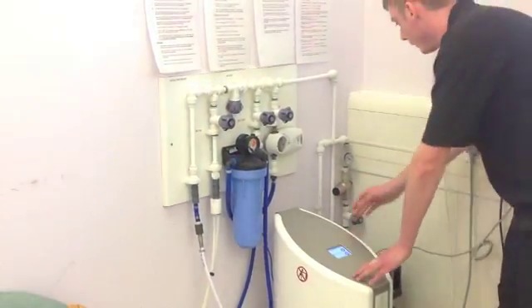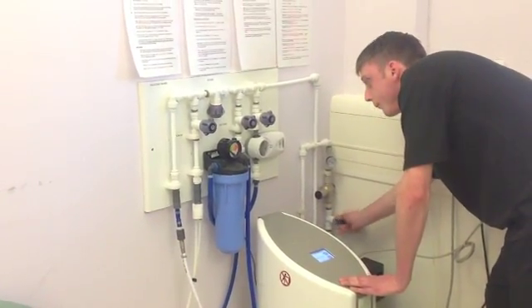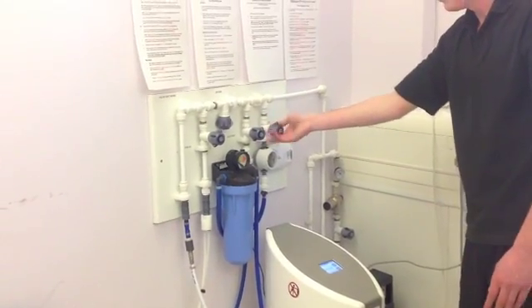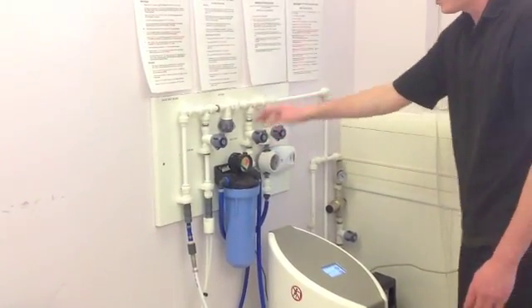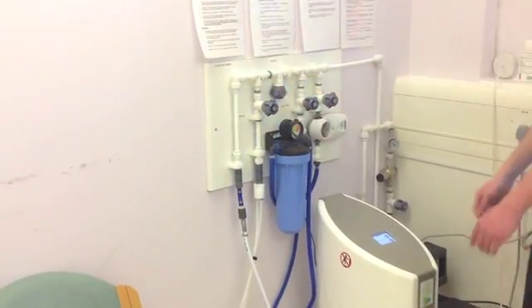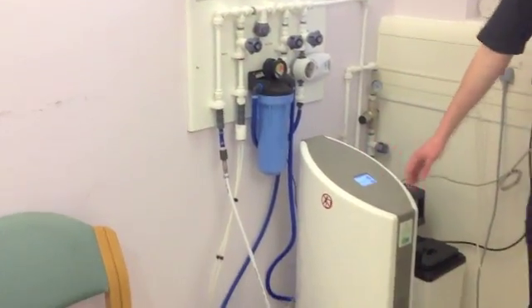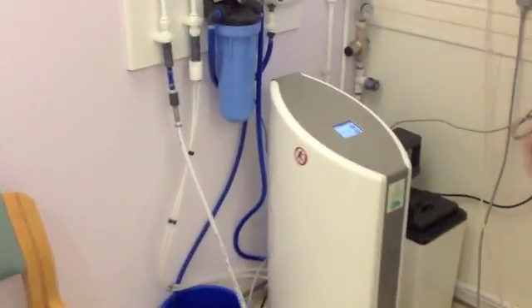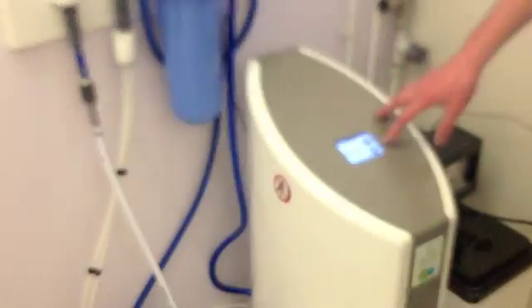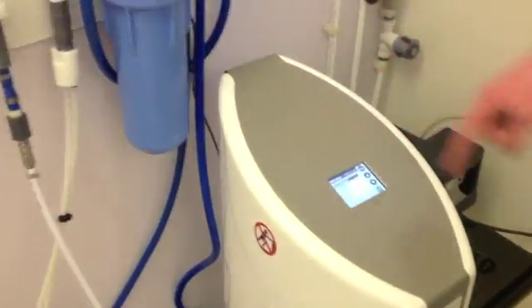When you are cleaning this, you need to make sure you have your water in tap on, your 2RO valve on, and every other valve closed or off. You can turn the power on and you come up with a screen like this which has menu and start on it, and just tap the menu button and you get another list of menus.